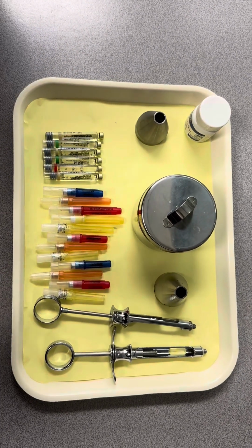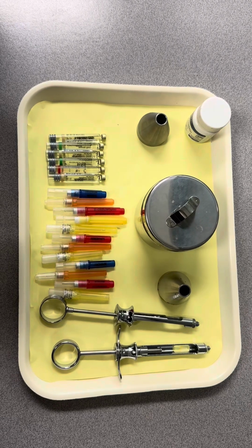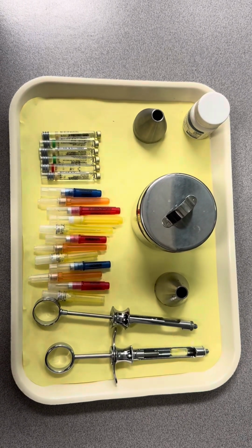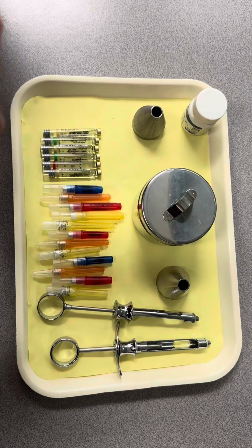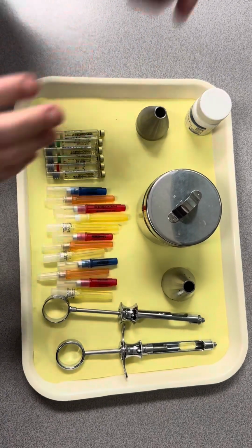Epinephrine just helps the appointment last longer and reduces bleeding. Then we have some with no epinephrine in them, which are for patients with health conditions or heart problems, pregnancy, all of that. This one has 1 to 50,000, so this one has the most epinephrine in it.